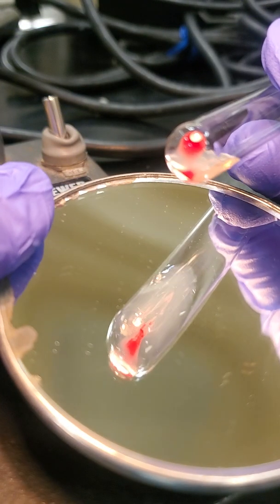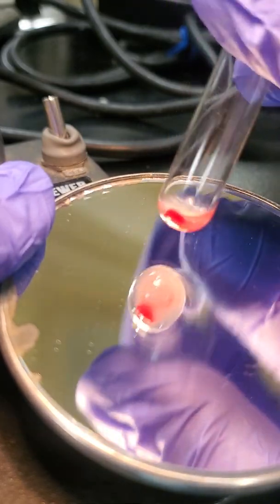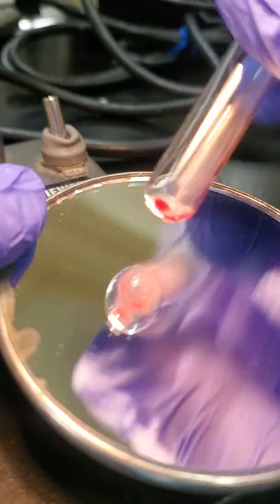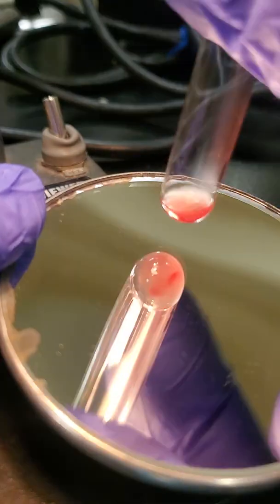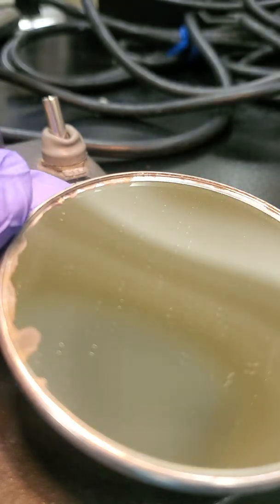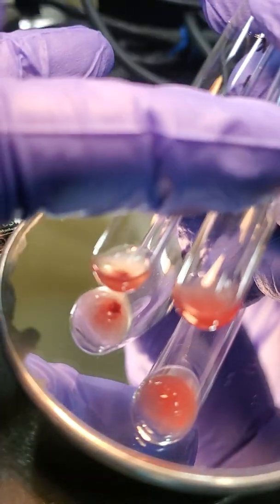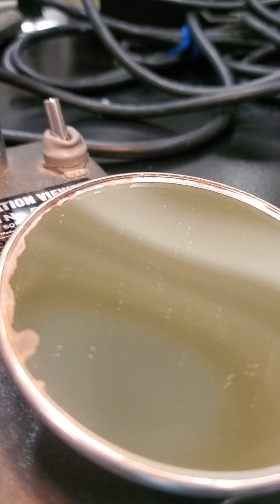Because they're still large clumps, but just not one solid one. And then our B cell tube, so far it looks pretty smoky. And keep rocking it so we get that button off. Okay, and that is a negative reaction. So our B cell is a negative reaction, so it is the reciprocal of our forward. Our patient has the A antibody but lacks the B antibody. So our patient is B positive.